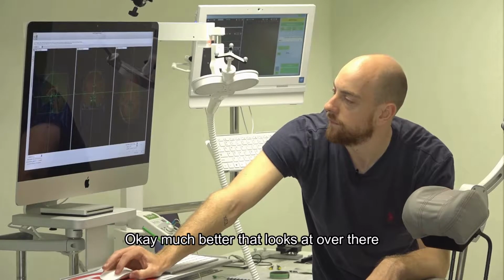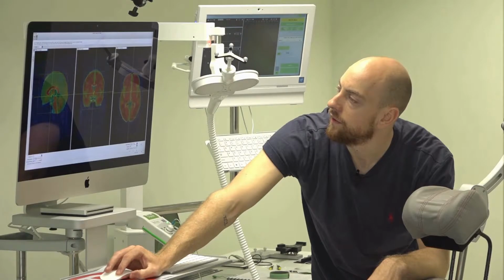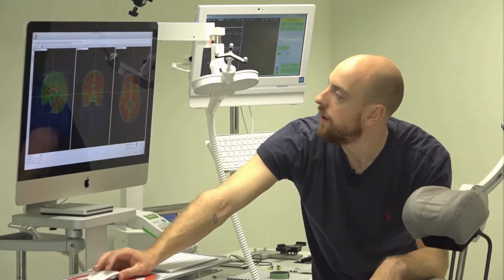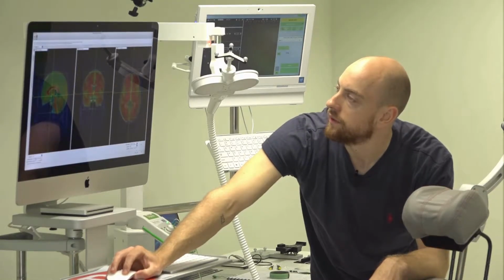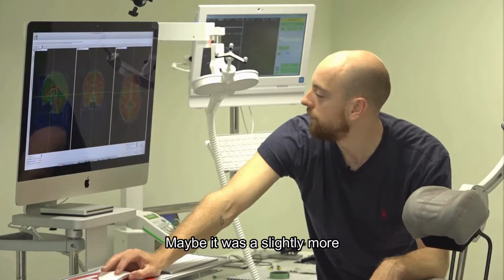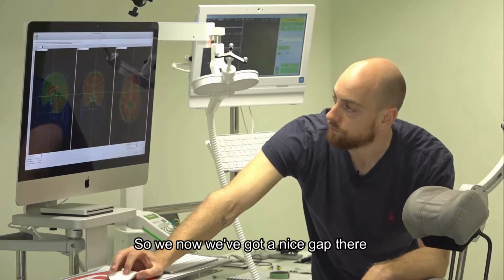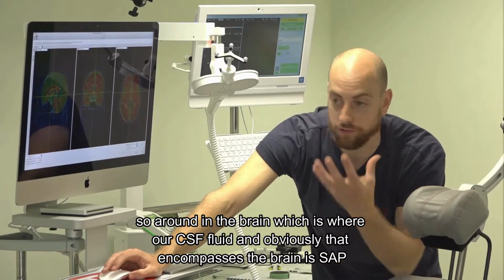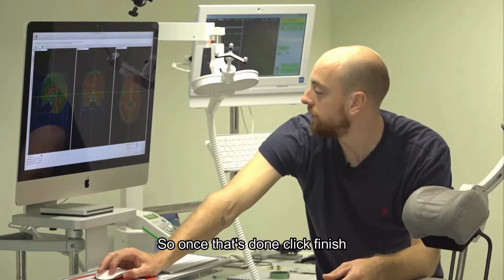Okay, much better. You see we're following the trace of the outline of an average brain there. I would recommend that isn't far off, maybe ever so slightly more. Okay, spot on. Cool. So we've got a nice gap surrounding the brain, which is where our CSF fluid, which obviously encompasses the brain, is sat. Once that's done, click finish.